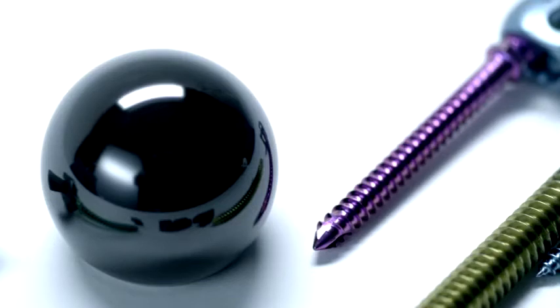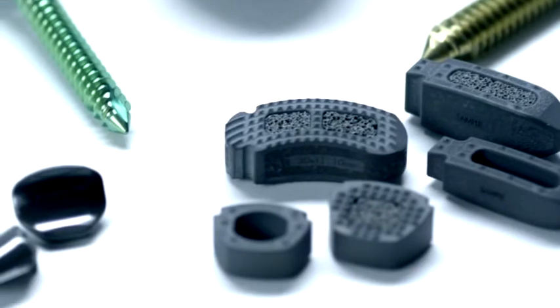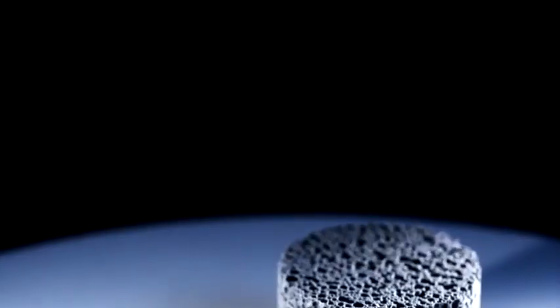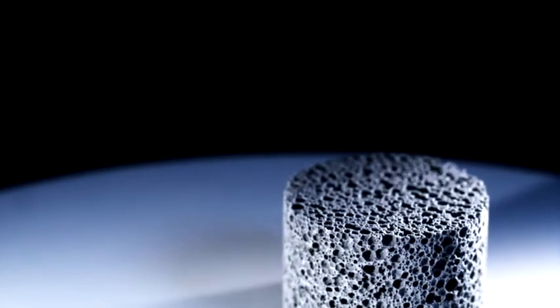But that's just the tip of the iceberg. Polished micro-composite ceramic, with its diamond-like strength and appearance, clearly has the potential to revolutionize the total joint replacement market. And their porous, cancellous-structured ceramic is ideally suited for interbody fusions, as well as hip, knee, and total disc replacements. We also see in the future that this could have great application in reconstructive surgery for hips and knees, and other areas where biocompatibility and strength, surface finish and toughness are important elements for those particular medical devices.